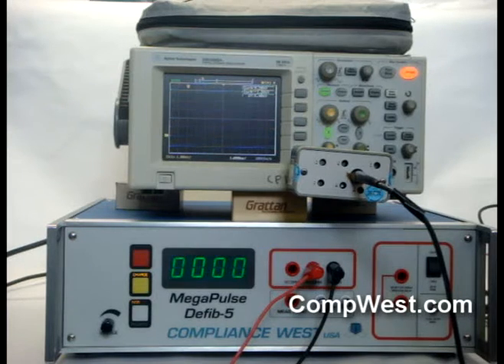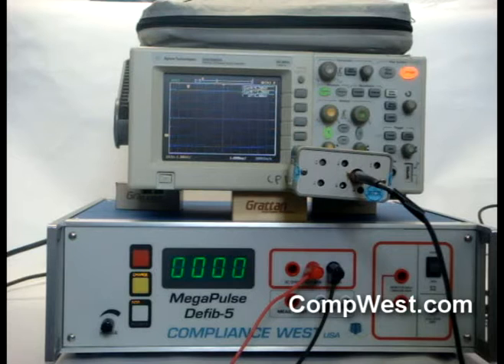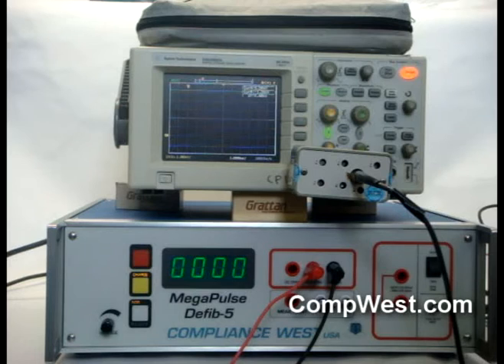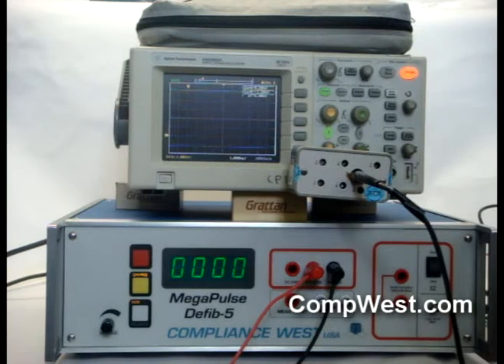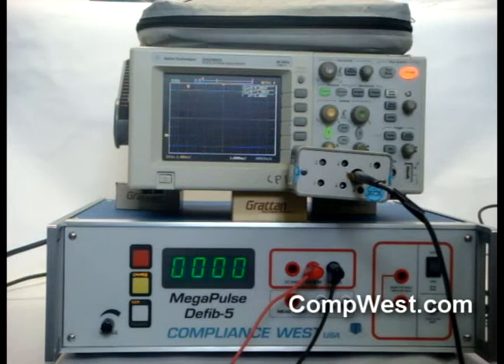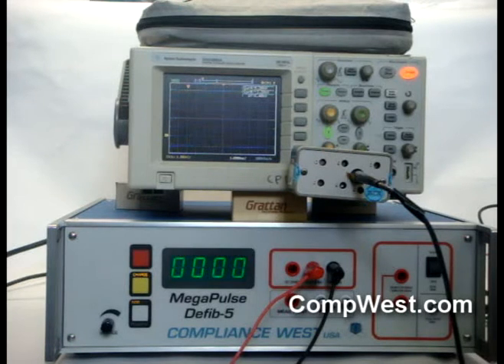The P6015 must also be trimmed for use with your oscilloscope per the instructions in the P6015 manual before using it to obtain waveforms. The digital oscilloscope we will use is an Agilent DSO3062A, and your scope may have different methods to adjust settings than ours, but the methods we show here can be applied to any digital scope with 60 MHz or better bandwidth.